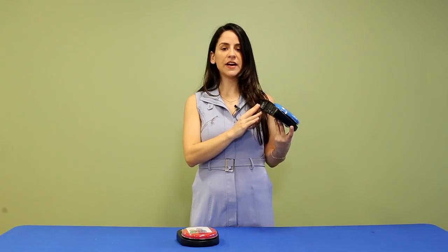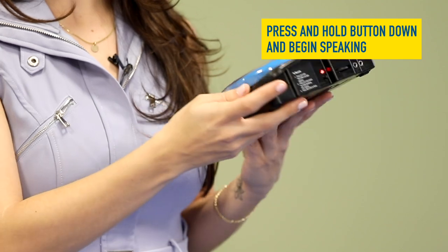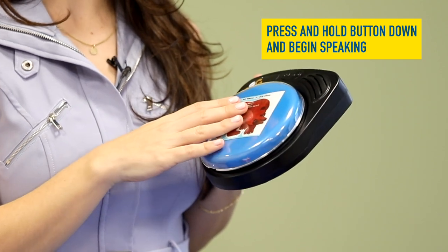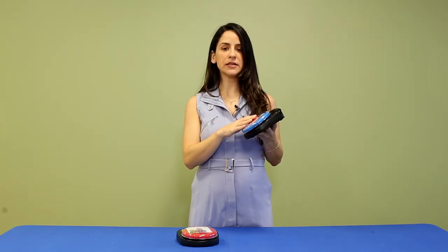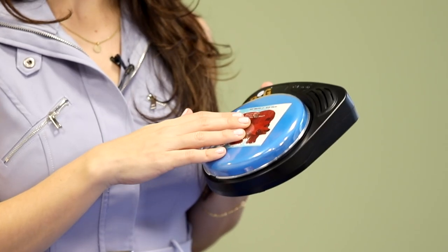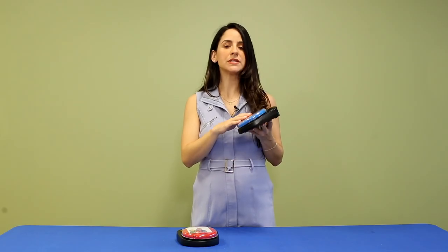Our device is now on record mode. Then press the button switch down and begin speaking. Do not release until you are done recording your message. "Brown bear, brown bear, what do you see?"